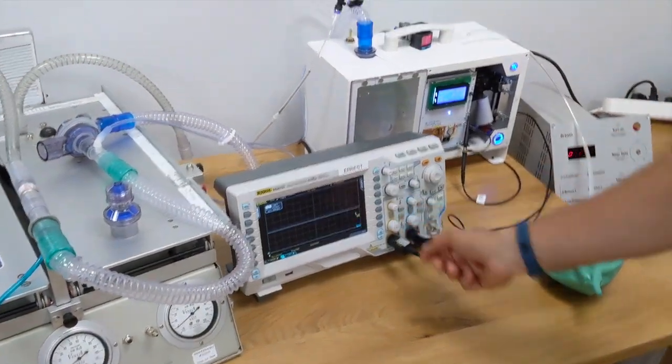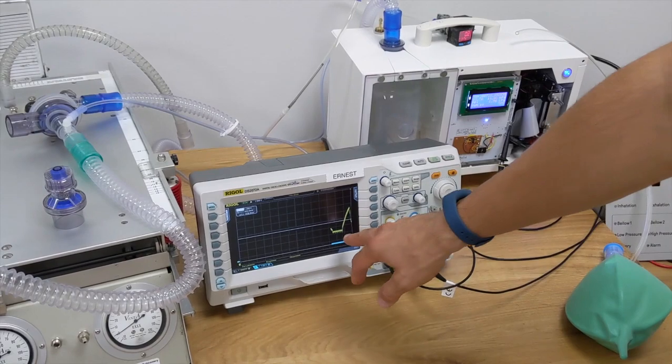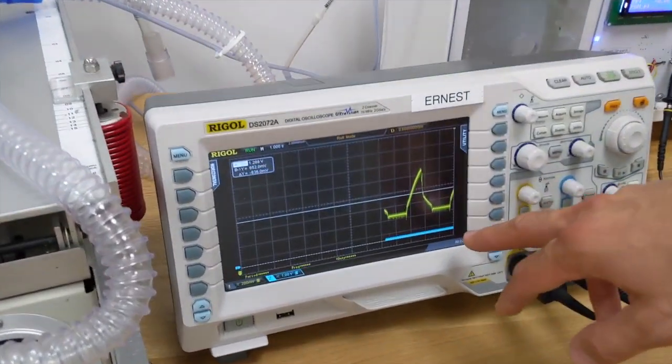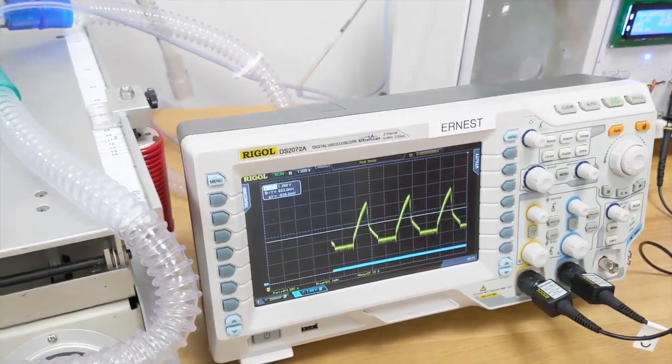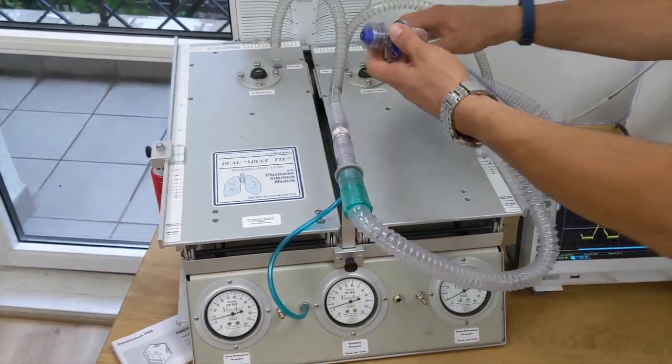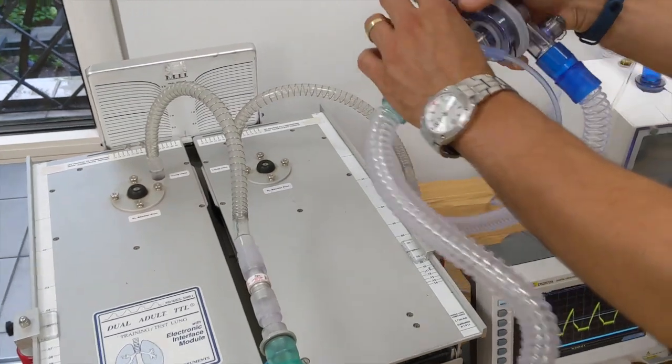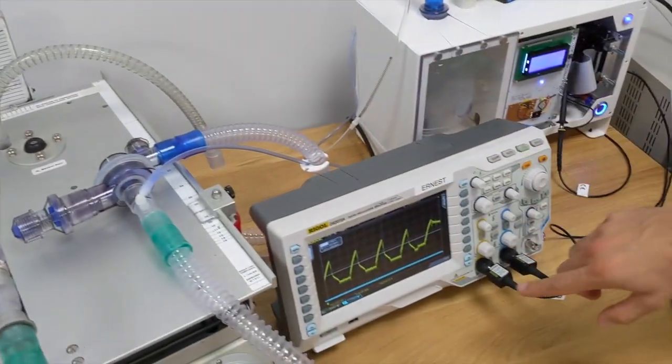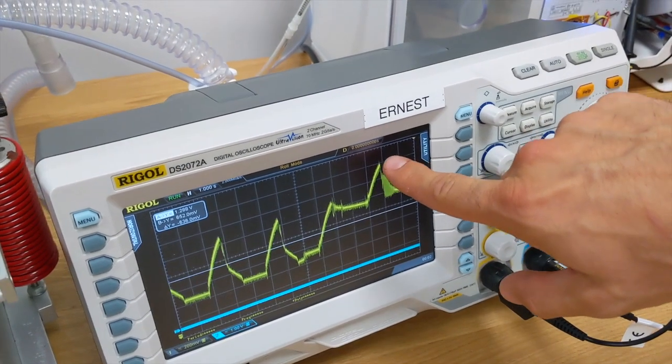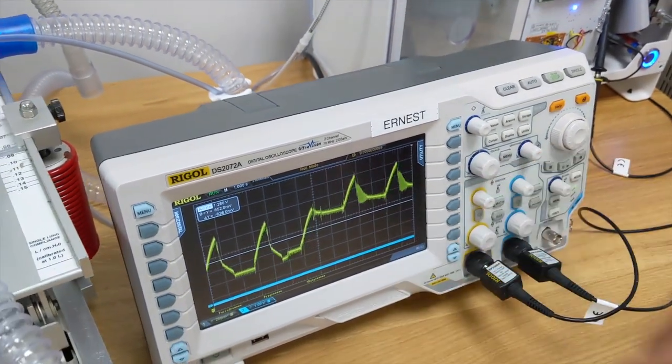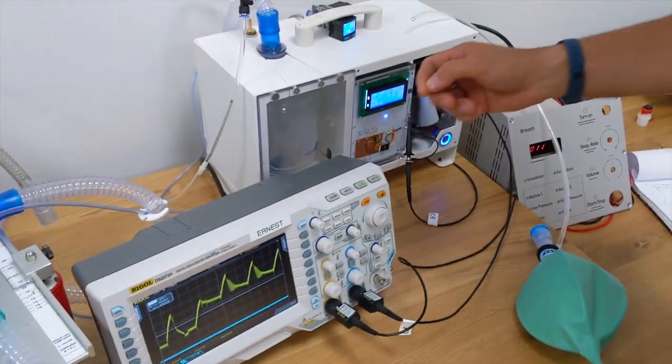We have in the unit, you can see how it operates. This is the pressure that is going to be pumped. And then we have the output. If I use the PEEP valve, for example, we have the value 10. You can see the difference that we are pumping the pressure. It is on the higher level. We have some oscillation from the valve. And what is important?